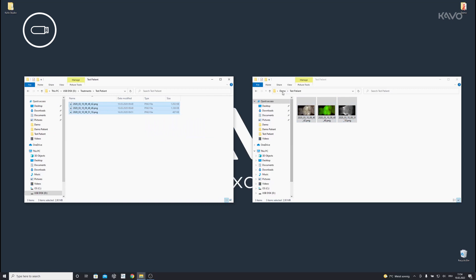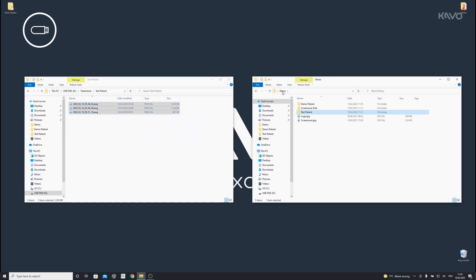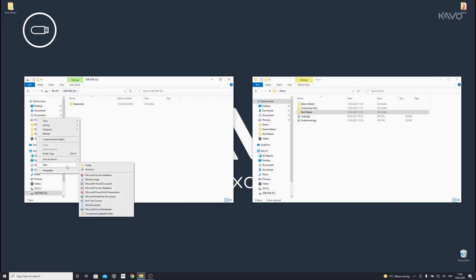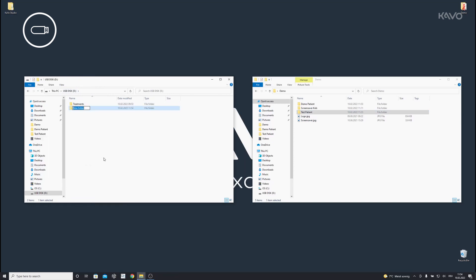To import media such as screensavers, images, or folders, create another folder and name it Media. Additional subfolders or images can be stored within this folder, and you can choose any names you like for the subfolders and images.